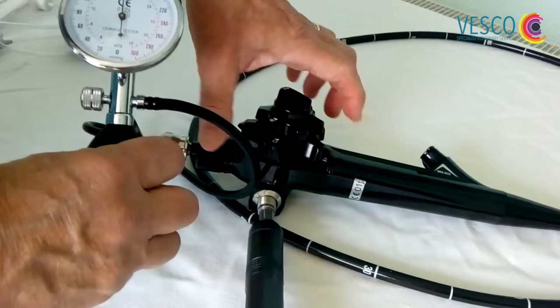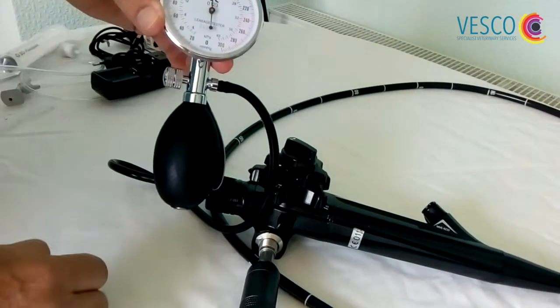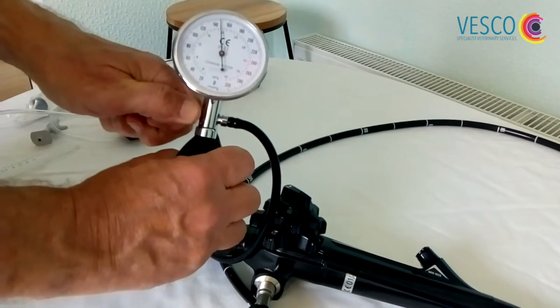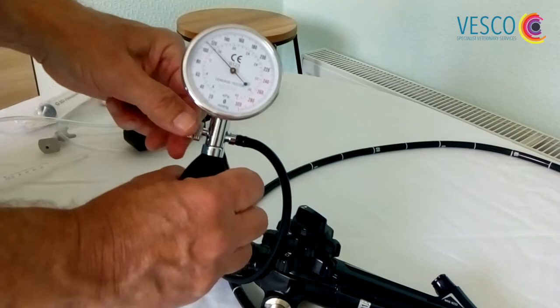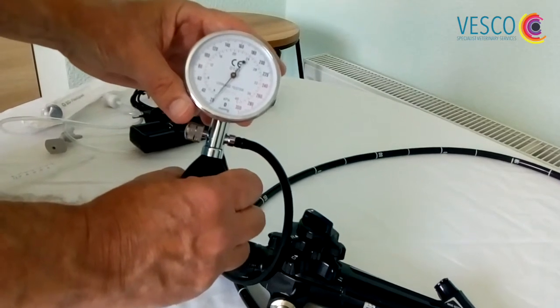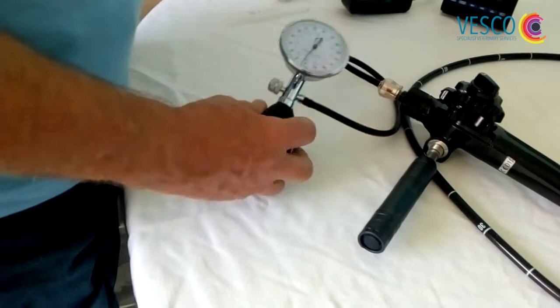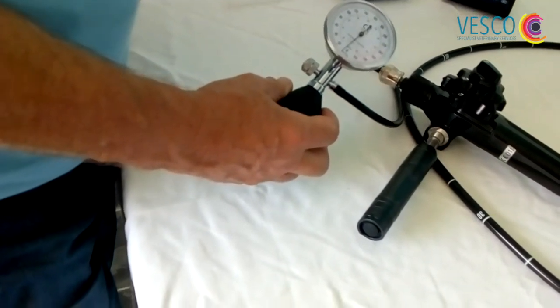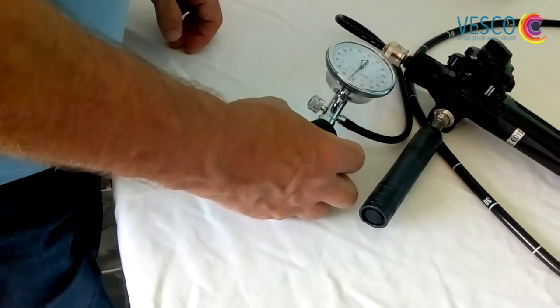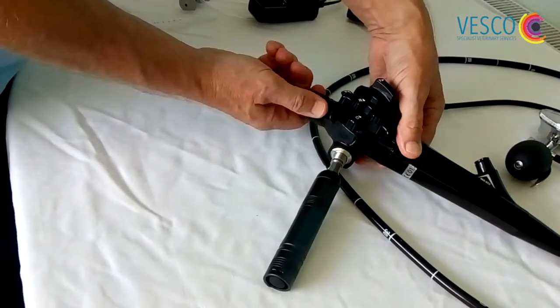Go all the way forward, all the way back on both wheels. If that doesn't drop, that simply means your scope is leak proof. If you had a leak, you would see the pressure drop significantly quite quickly, all the way to zero. If that happens, I would strongly recommend that you ring the office and seek advice, and please avoid using the scope. Once you've carried out the leak test, make sure there is no pressure left in the scope. Short term won't do much damage at all, but long term it will put a strain on any seals and joints in the control body. So pressure down to zero, remove the leak tester, and unscrew the waterproof cap.